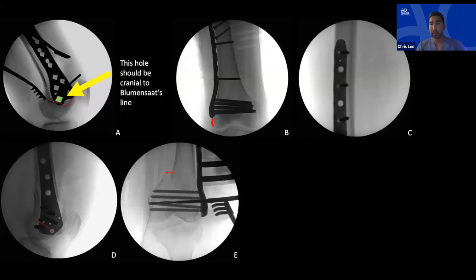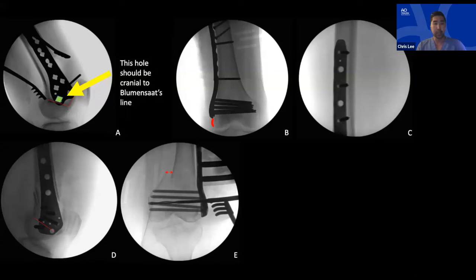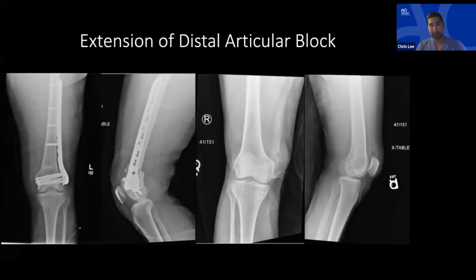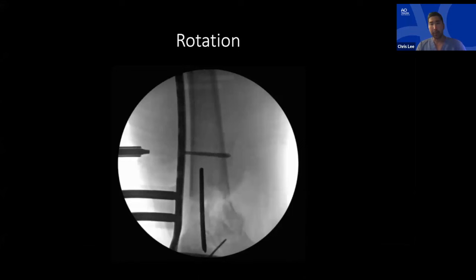If the plate is applied too distal: you get in-out screws through the notch, and medialization of the articular block because the wider posterior condyle is not attached at the correct plate spot. Extending the articular block brings the wider posterior condyles anteriorly, increasing the distance from shaft to plate — you can compensate by putting locking screws in the shaft first to avoid golf-club deformity, but you must scrutinize your reduction carefully when applying the lateral plate.